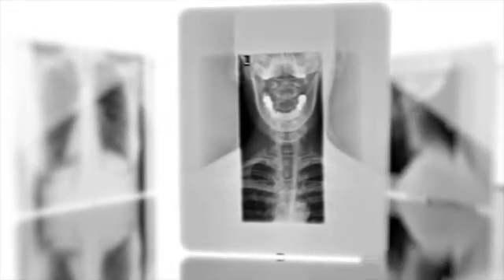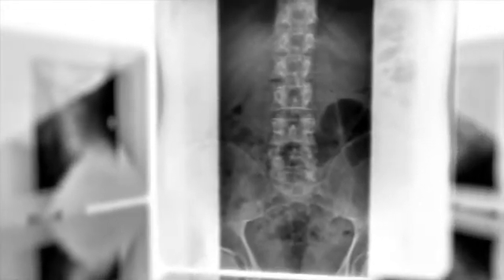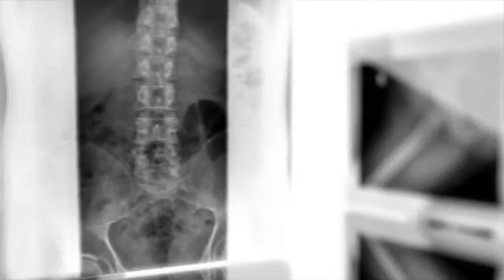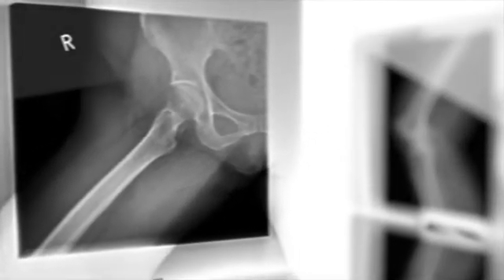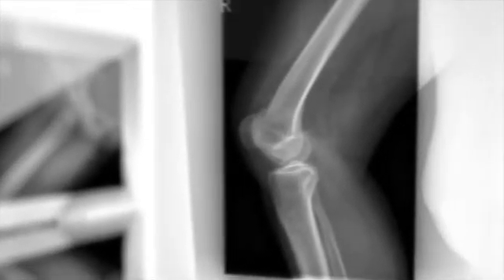Examion AQS software offers you the highest quality in image acquisition, diagnosis and administration. It is intuitive to use and ready for x-ray exposures in no time. X-ray orders can be combined according to your needs and desires. We are convinced that our Examion AQS software will support your optimal workflow, and we'd like to take a few minutes to introduce it to you.